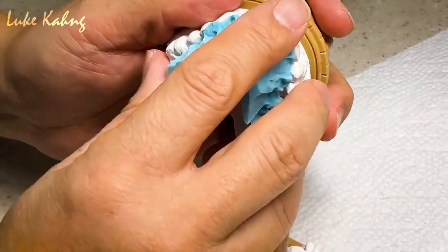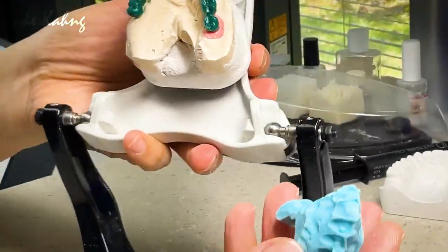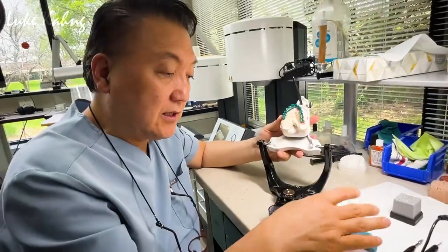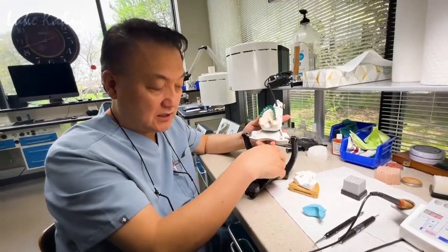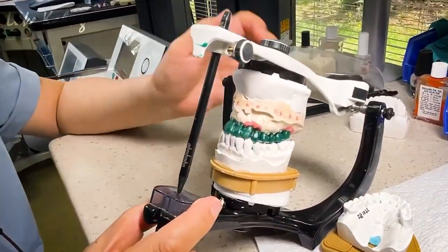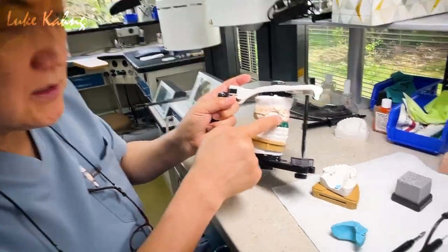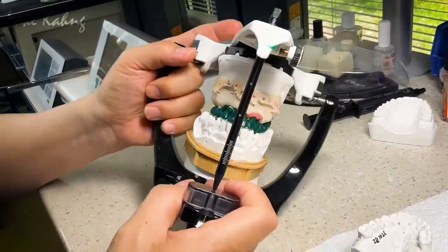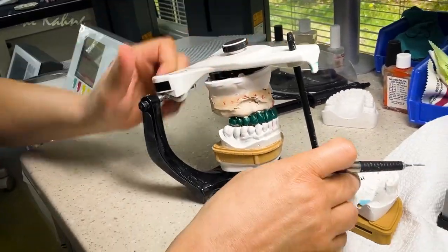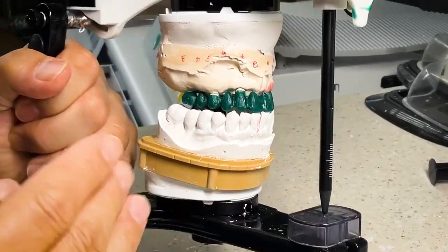This is an excellent great tip. We check the bite with articulation — we put them together and articulate, which gives us this. The base frame is really good. Whenever I look at this I would say this is a metal try-in. First I have to grind a little bit more on the facial area, trying to bring it in.